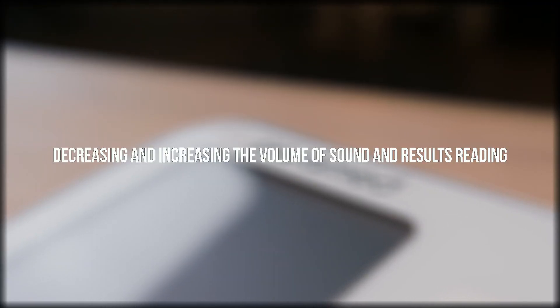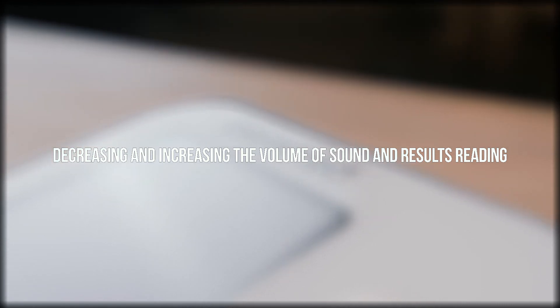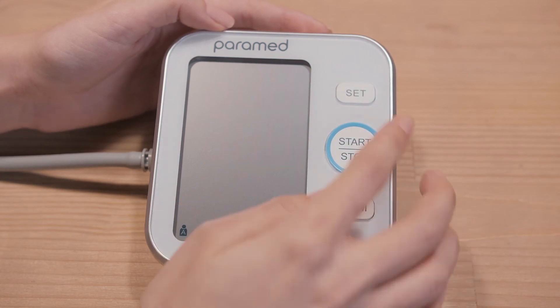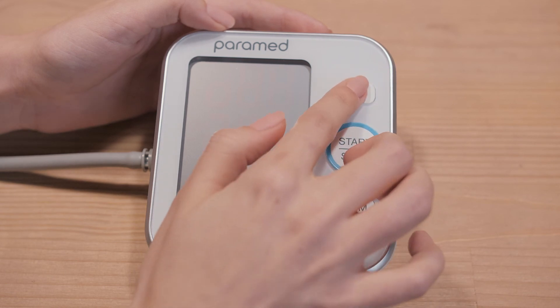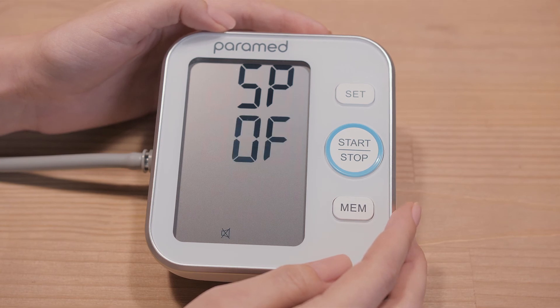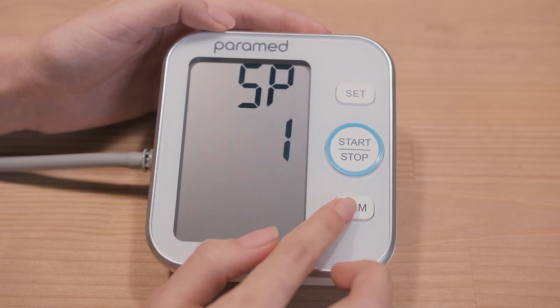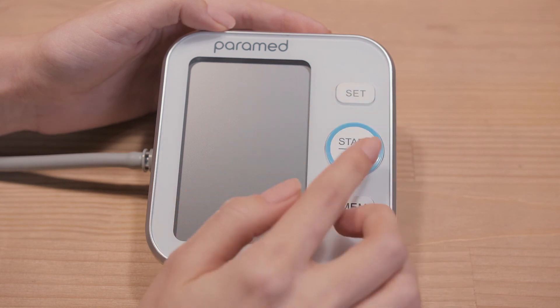4. Decreasing and increasing the volume of sound and results reading. While the screen is off, press the SET button for more than 3 seconds. Press SET several times until the SP symbol and a digit appear. Each digit is the level of signal volume — the higher the value of the digit, the higher the volume. To increase or decrease the volume, press MEM several times. To save, press SET and then the OFF button.